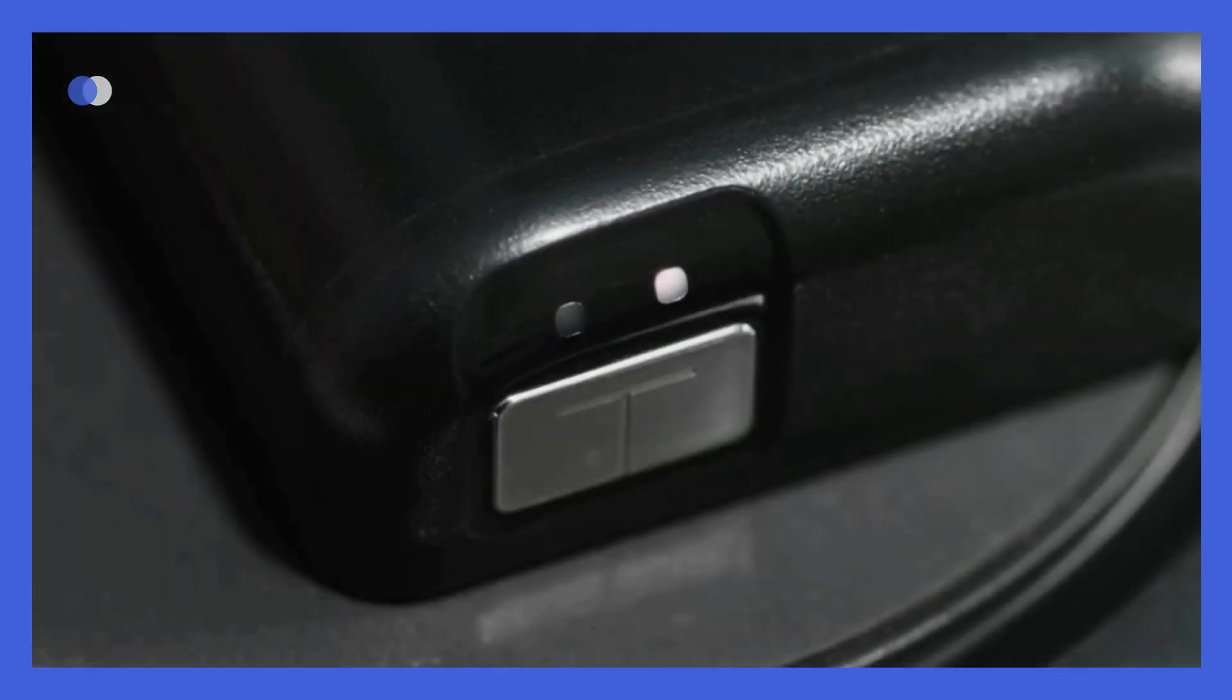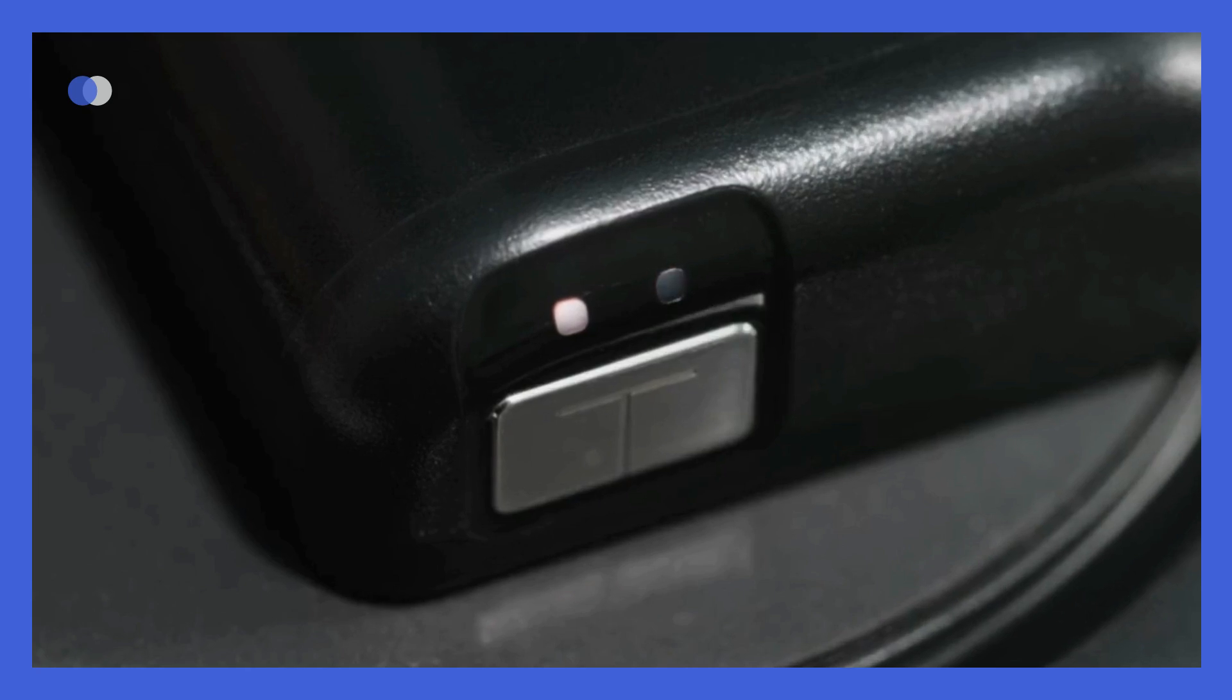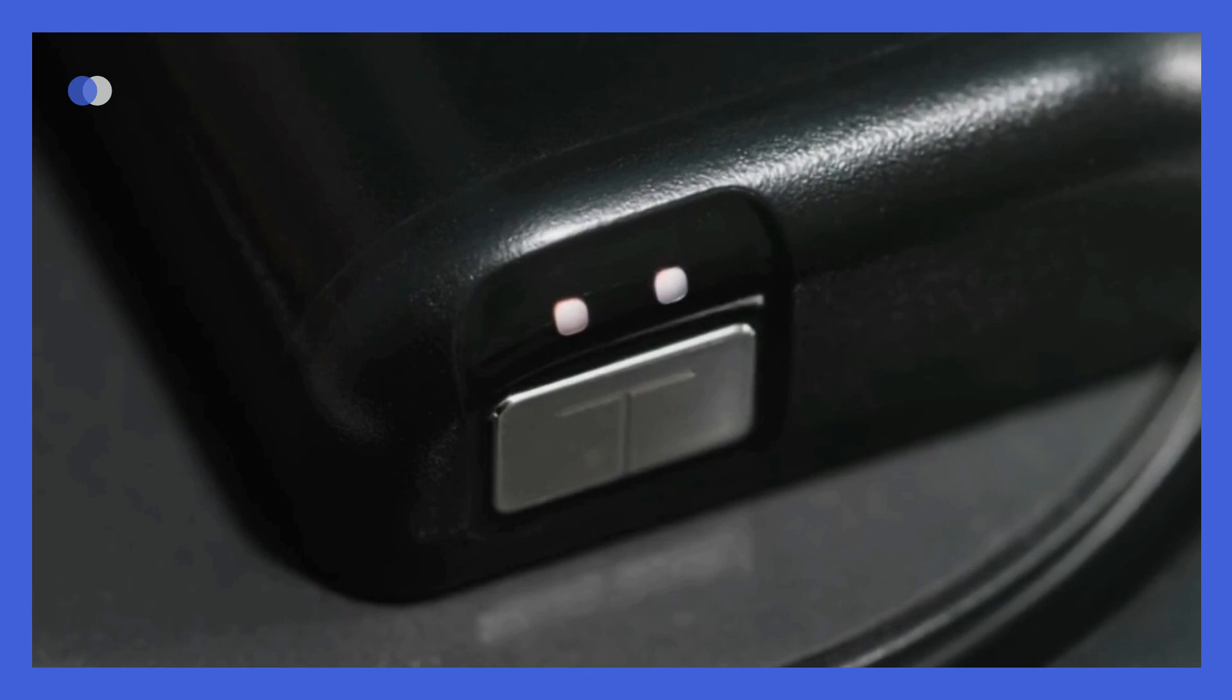The pump status lights can also be used to show the charge amount. One of the lights will blink if the charge is less than 50%. If the charge is more than 50%, one light will be solid white while the other blinks until the pump is fully charged. You will know charging is complete when the pump status lights above the pump button are white. A full charge will typically last between 3 and 5 days depending on your use.